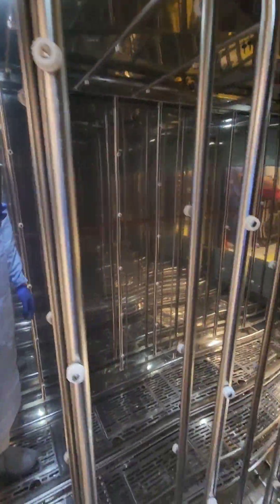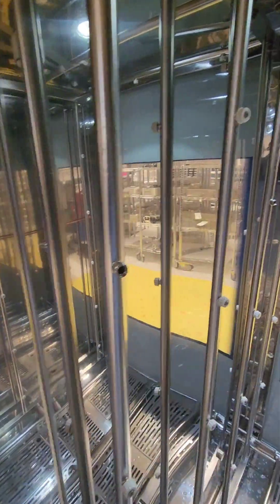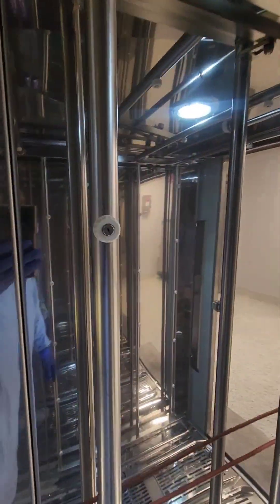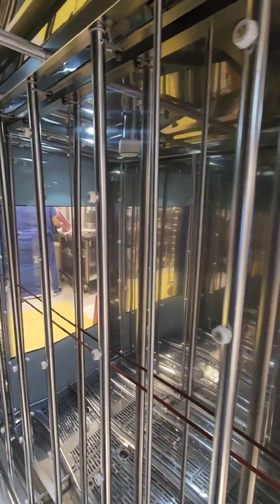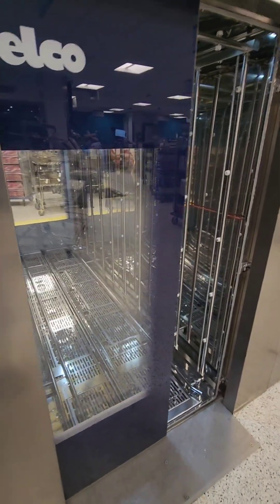Now we're going to check our nozzles. This cart washer has several nozzles — you want to check that they're first unclogged and second that they're all present. As you can see, I'm missing several nozzles, which makes the washer ineffective and inefficient because it diverts water away from the nozzles and sprays heavily in one section. I'm going to grab my bag of goodies and replace those.